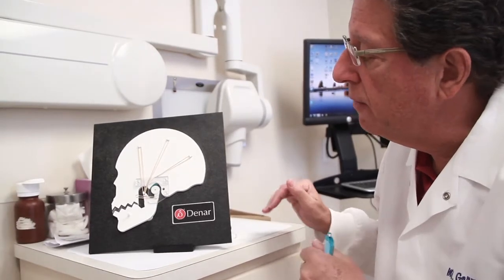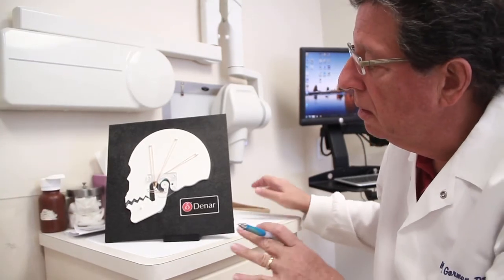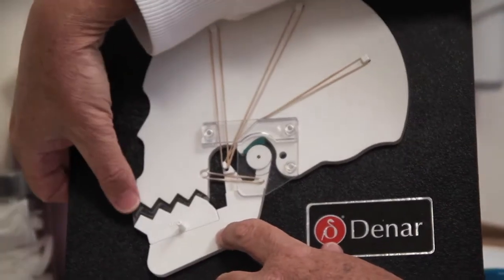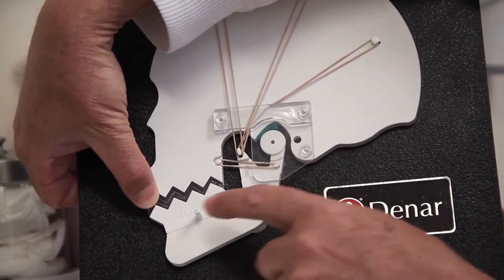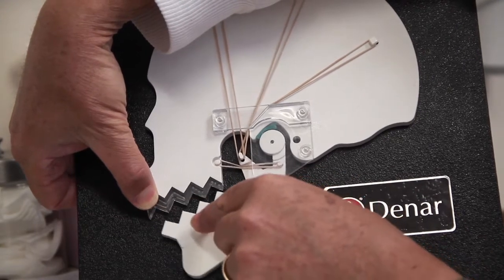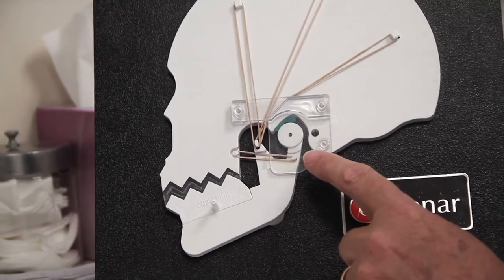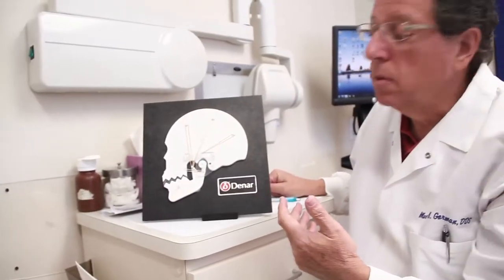But in 85 to 95% of the patients we treat, we get an excellent result and the patient is extremely happy. Then I show them it's going to be an upper appliance — I hold the upper appliance in place and show that with the appliance in place and the lower jaw moving, everything is moving on a nice, healthy, stable arc, there are no interferences, and the condyle TMJ area is now in a much healthier position, and the healing can start happening.